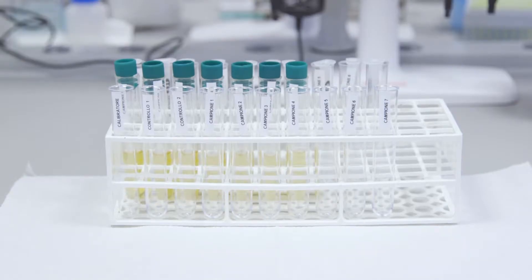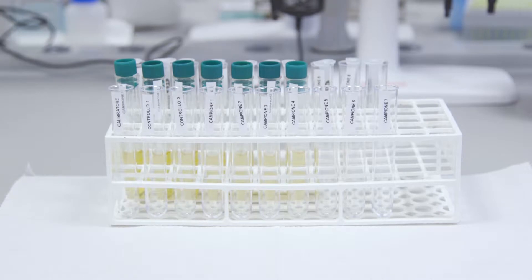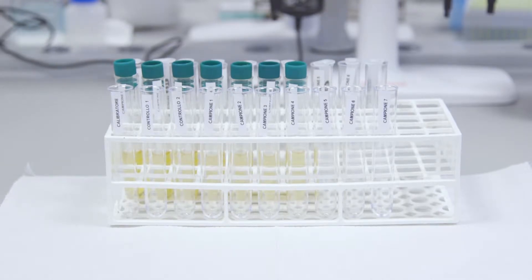Now that we've completed the plasmatic catecholamines, we are going to present the analytical procedure for the urinary catecholamines. We prepare as many tubes as there are samples, including the calibration standard and controls.